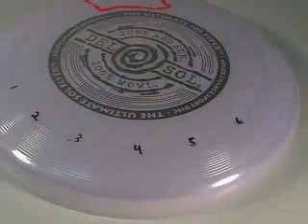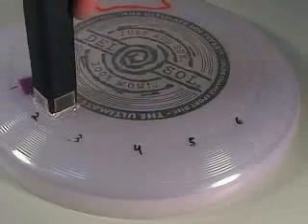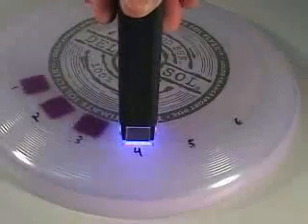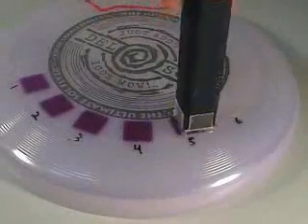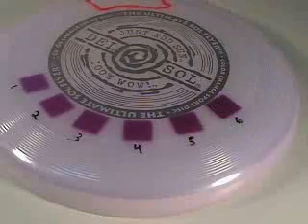To deliver photo test doses, place the handpiece tip on the skin and step on the foot switch to deliver the first dose of UV light. Then move the handpiece to a nearby skin patch and deliver the second dose of light, and so on, until all six doses have been delivered to the skin. This plastic disc turns color when exposed to UV light. However, actual skin will not show any changes in color, erythema, or redness until 24 hours later.